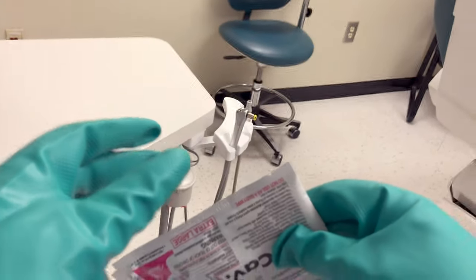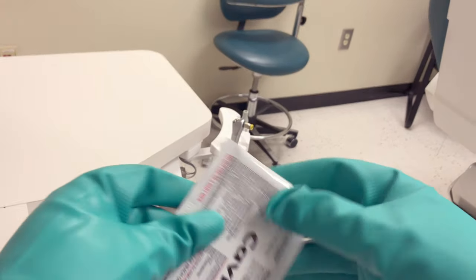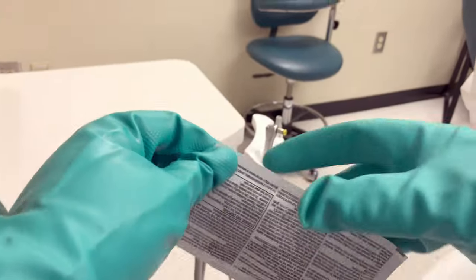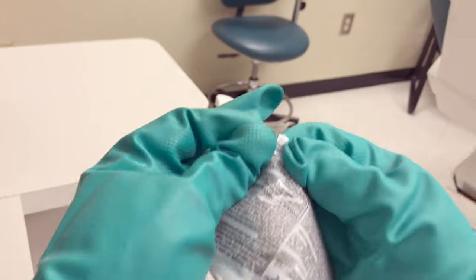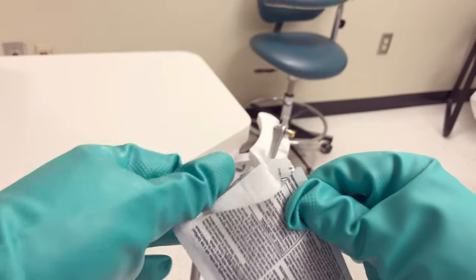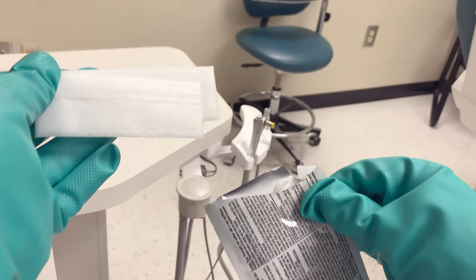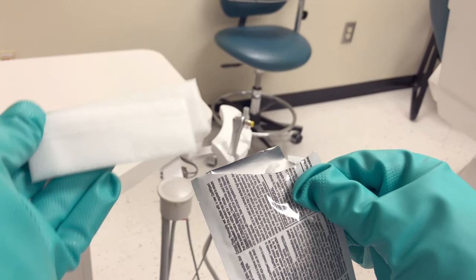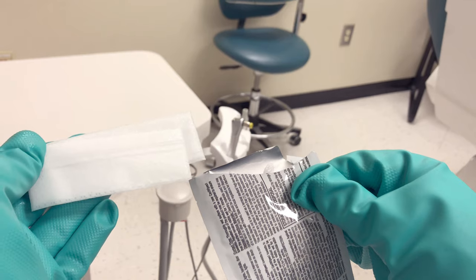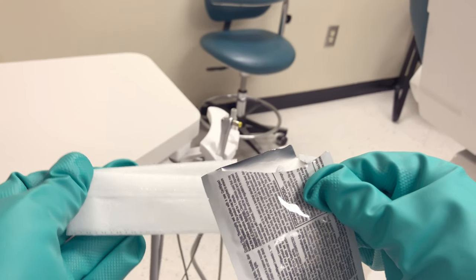If it's the end of the day, we're going to disinfect everything, even items that did have barriers on them. This is called the wipe-discard-wipe technique because we take one wipe, wipe all of our surfaces that need to be cleaned, throw it out, and then use a second wipe.